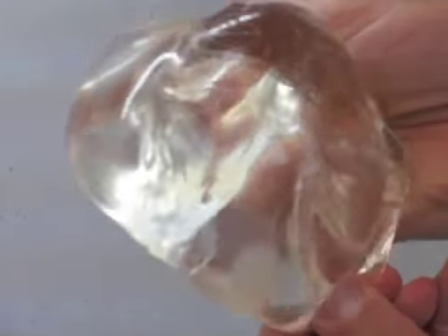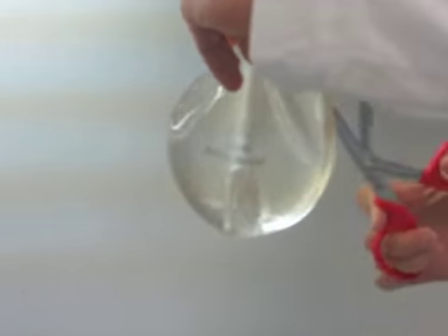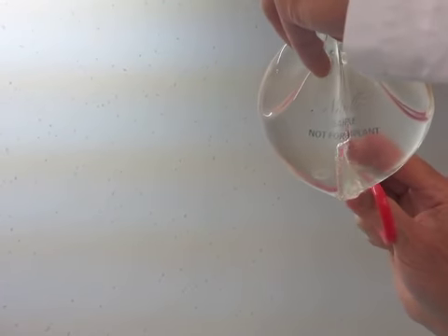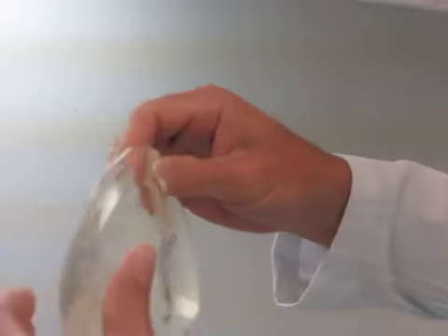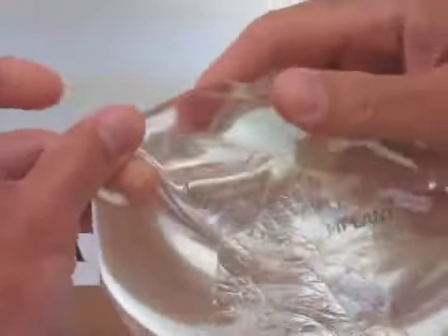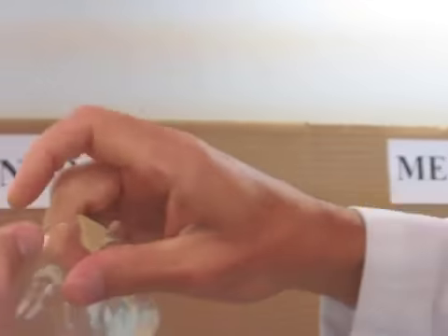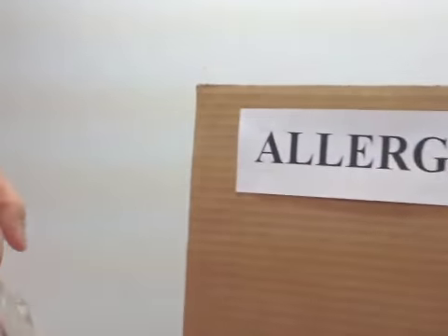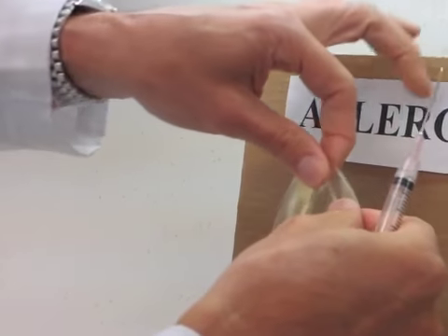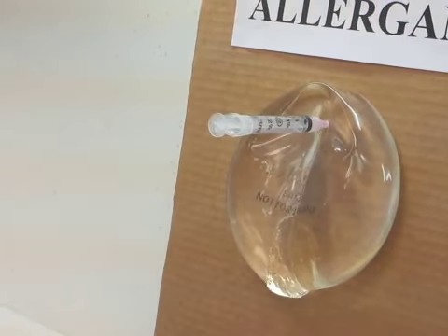That's the implant. That's the gel. It's sticky. You can see it's stuck to me. And as a matter of fact, I think I'm going to open it all the way so we can see what happens. Here's the implant. Cohesive. Yes. Sticky. Really sticky. Let me put on some gloves. In the meantime, I'm going to tack this up here and we can see what happens, if anything. There's the Allergan Implant. Let's see what happens to that.